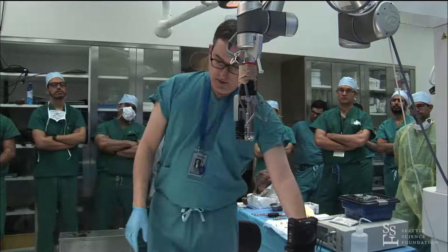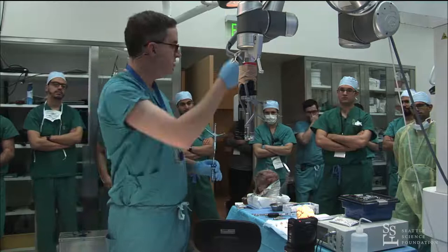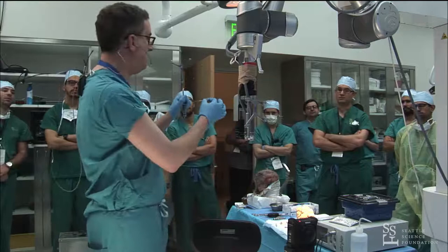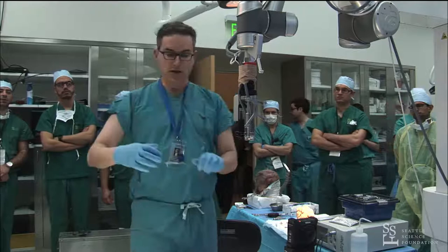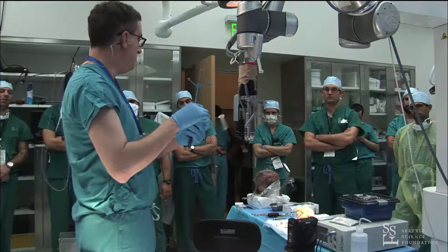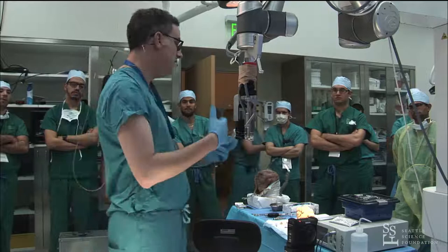With your wand docked in the trocar and the projection set, there is the so-called shepherd's crook or gimbal, which locks onto the disposable clear portion of the tube at the base. This docks into either a Greenberg retractor or a flexible arm. Instead of being fully fixed, it allows the tube to rotate slightly — it's semi-floating — which makes it a little easier and allows it to move with the brain.